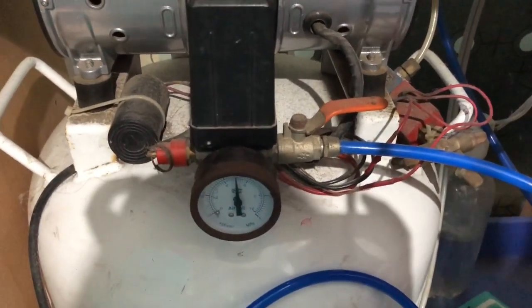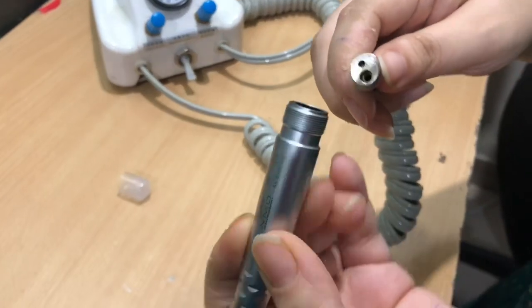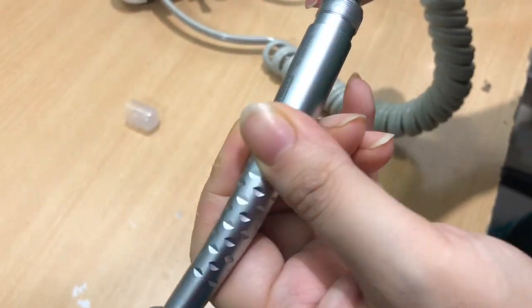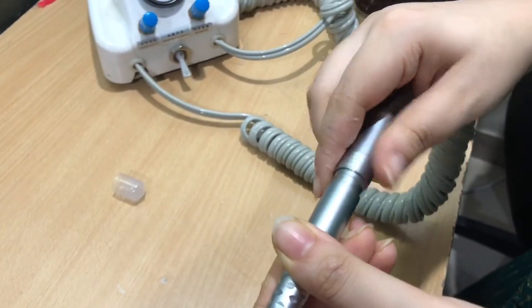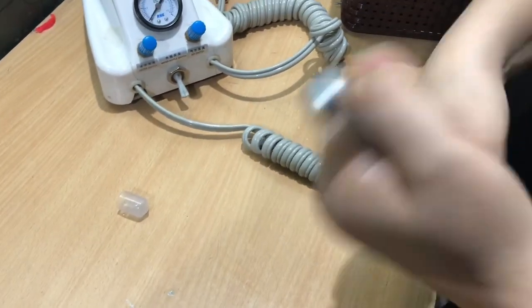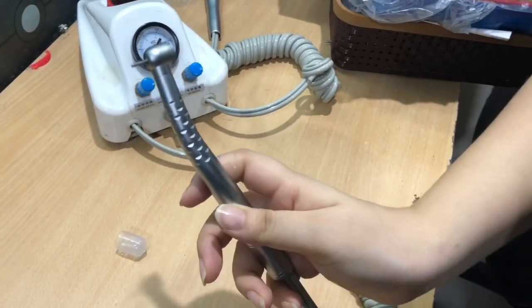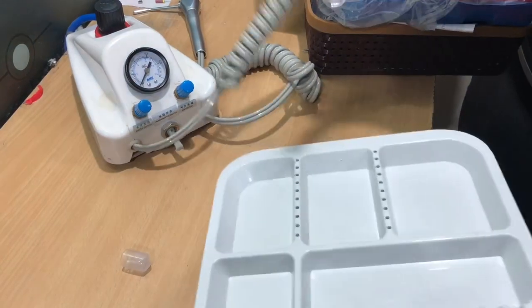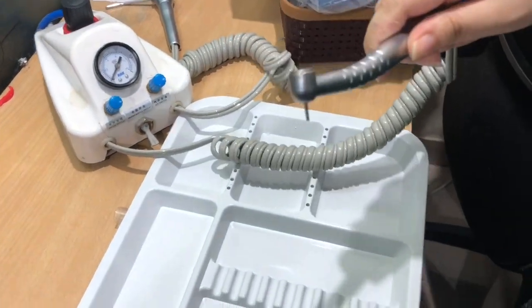So now, this is two holes, so I'm placing my dental handpiece in this hole. This is also two holes. You can see I'm pressing the foot control here.